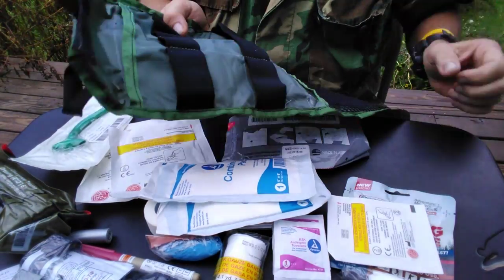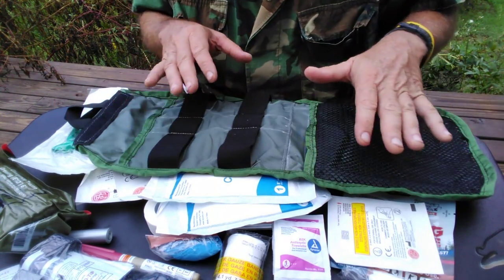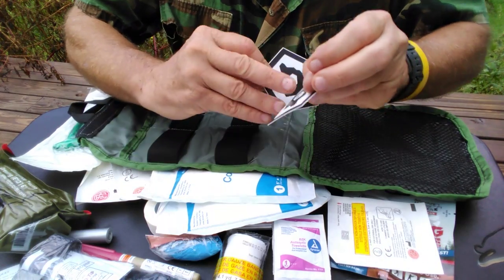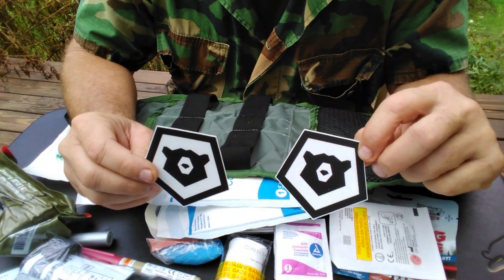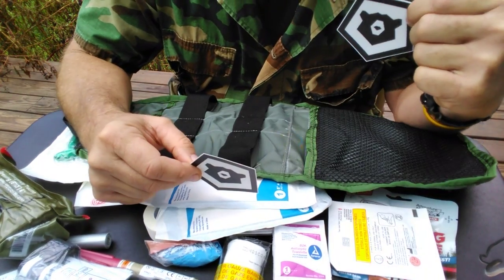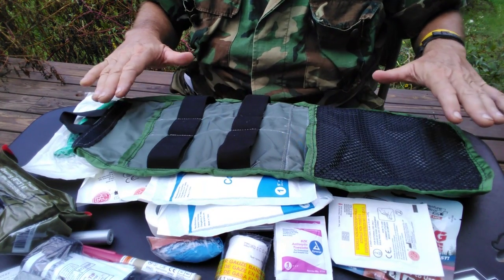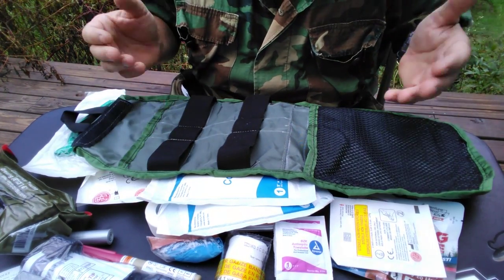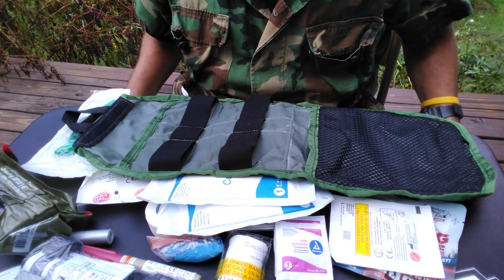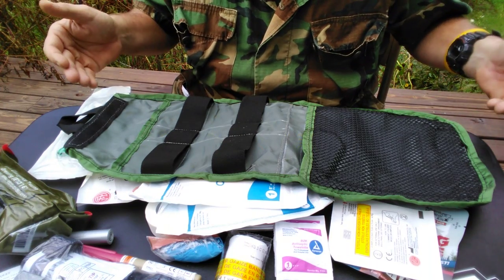And that's what you get in this kit. As you saw when it was packed up originally, there is room to add more of your own stuff should you want to. Not only that, but you get two — count them — two bear stickers to proudly display on your laptop, your cubicle, your coffee cup, the back of your car — whatever. Bear Nation. This is the third iteration of the kit. It just gets better and better as it goes.